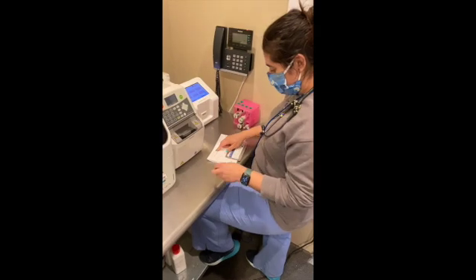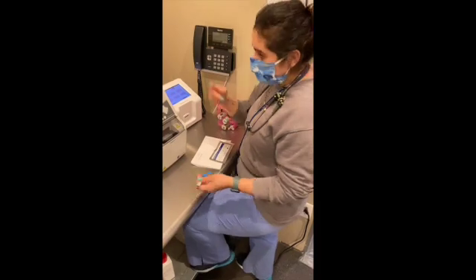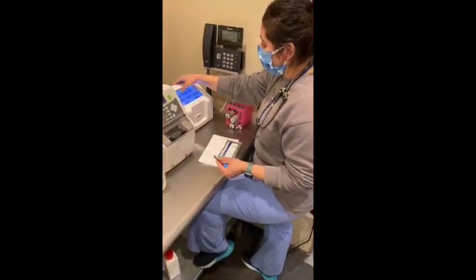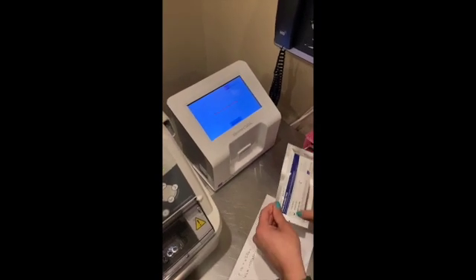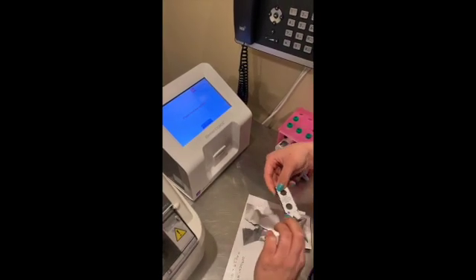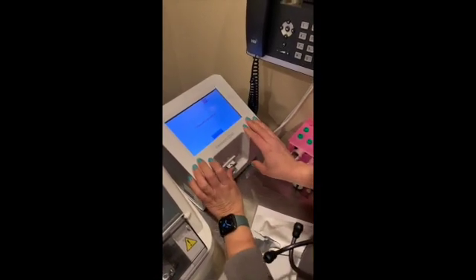You're also gonna need the patient ID that you get from the lab, from the computer, and then the lab number that you get when you submit the request for the test. On the machine, you'll click PTT, and then it tells you to submit the cartridge. Just be careful because you need one of these. I think it's the lot number, so be careful when you go to rip up your thing. Take out your little pipette and the cartridge. Load it in.